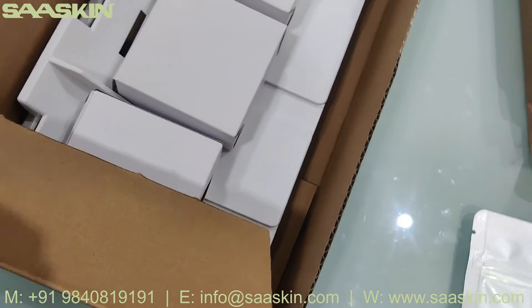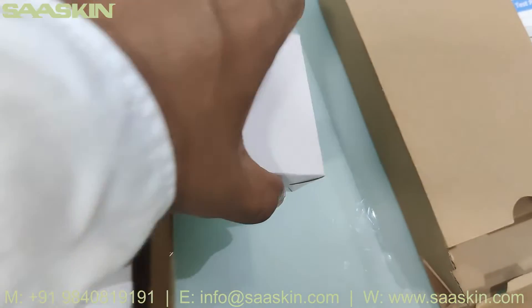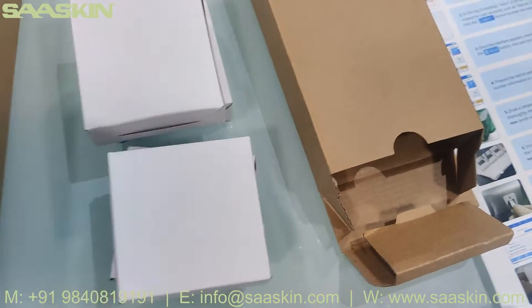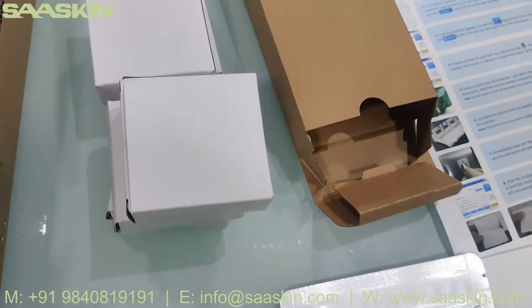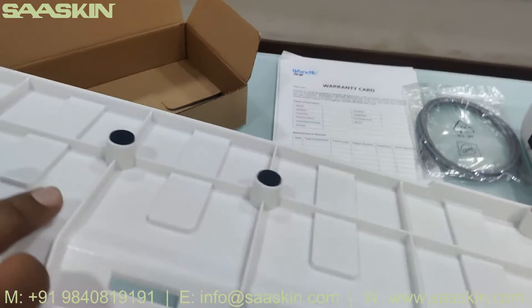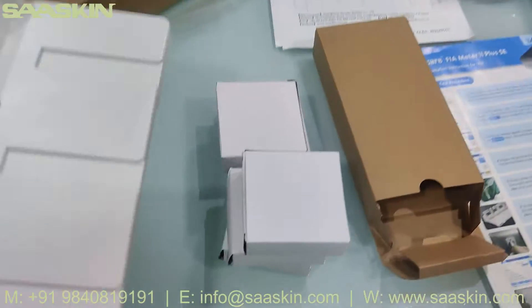There's one platform kit. I'll show you the contents inside. You have got five timers. And this is the test platform. You can see this platform is used to keep the test in place.